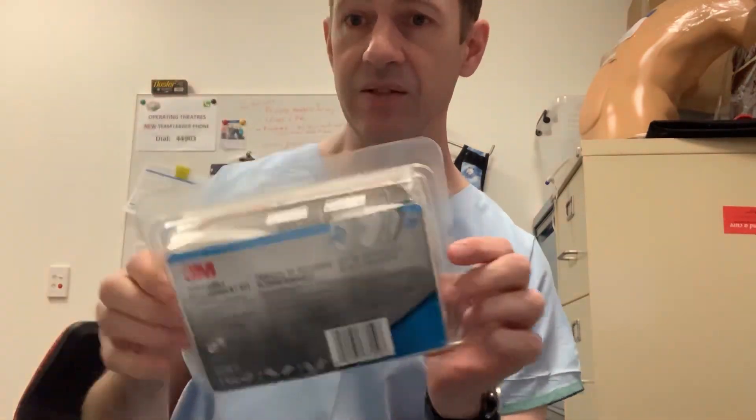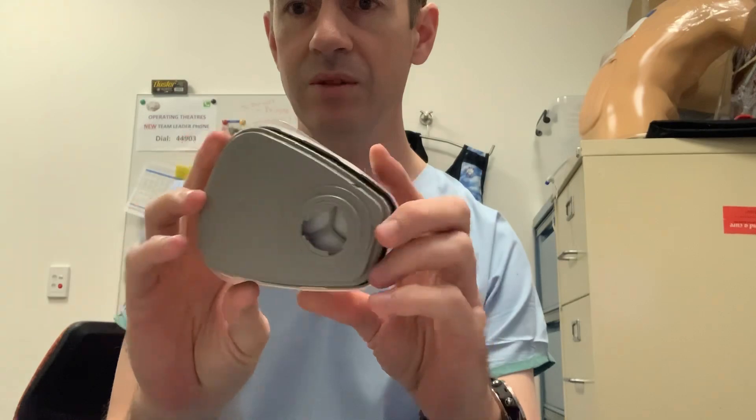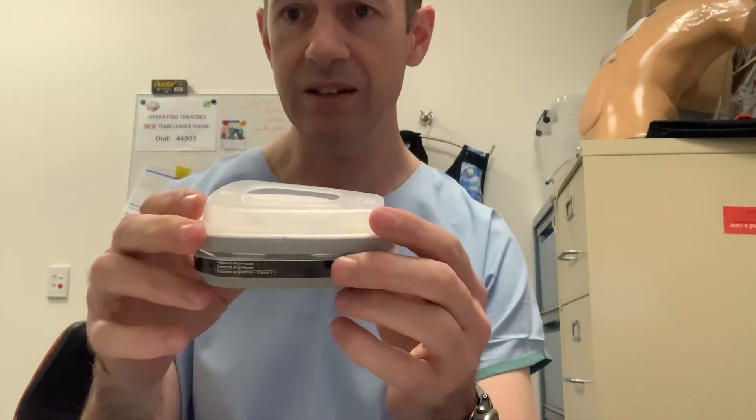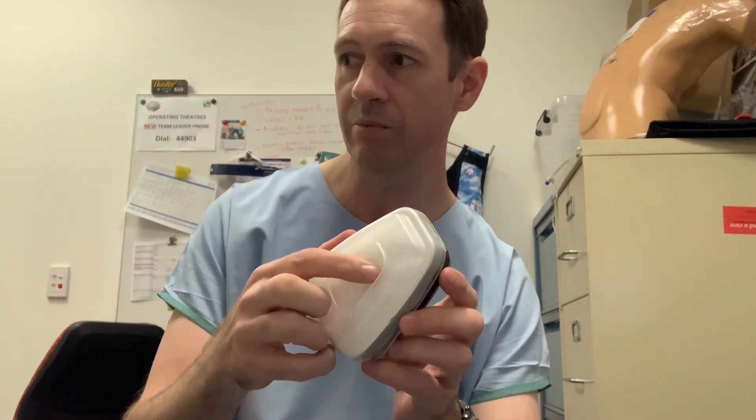This package is something I'll be keeping in my shed for painting or weeding, because I'm not going to use it clinically. So this is the filter that it comes with. It's got a 6001 vapour filter on one side. But the white section held in with the plastic housing is the only part that's really useful for filtering viruses — that's a P2 or P3 filter if you're using a full face mask. That can come off with some difficulty.